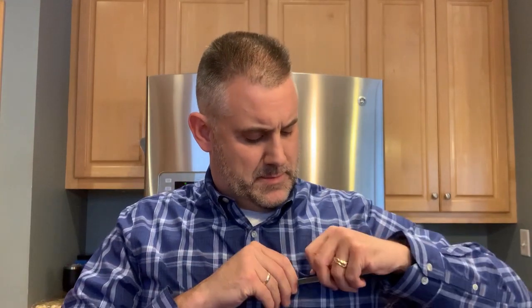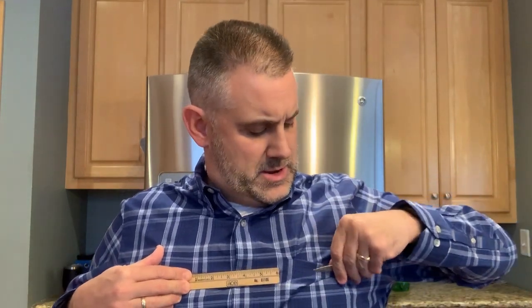Could we wear one of these on the opposite side of our device? If I put my name tag right there — absolutely. We could absolutely wear this on the other side of our device, not a problem at all. Now some people are worried that maybe it's a little too close. Well, the medical device companies — Boston Scientific, St. Jude, Abbott, and Medtronic — all say to keep magnets about six inches away from your device. For me, that's about the distance between my thumb and forefinger. Here's the edge of my device, and the magnet is at least six inches away. Even if it were three inches, it would still be far enough away because it really needs to be directly on top of the device to initiate the response.